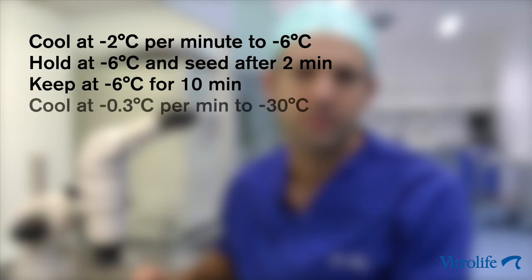Cool the straw at a rate of minus 0.3 degrees Celsius per minute to minus 30 degrees Celsius.